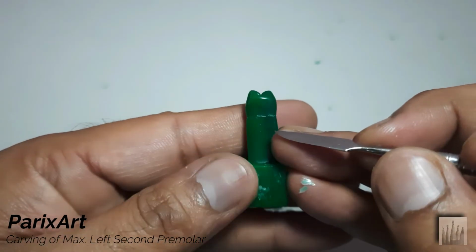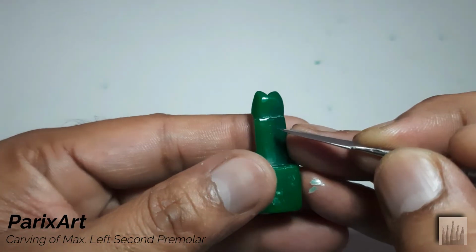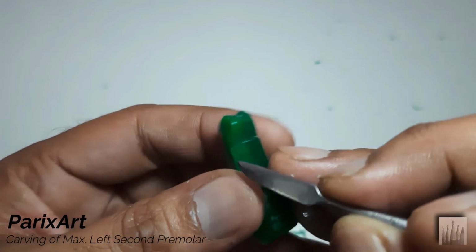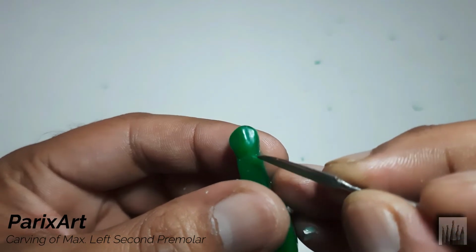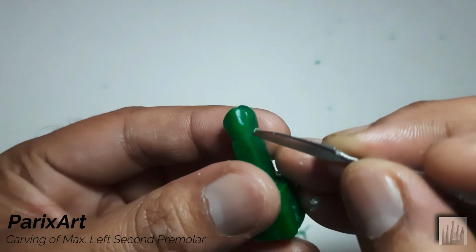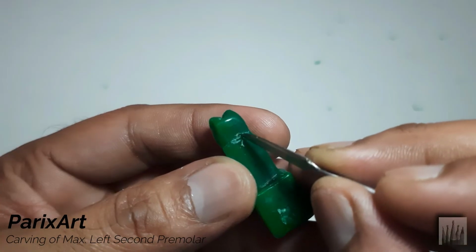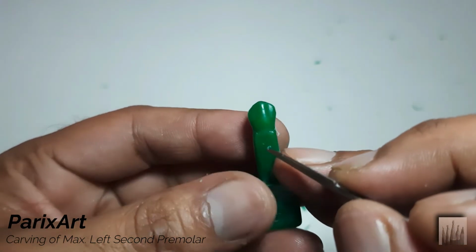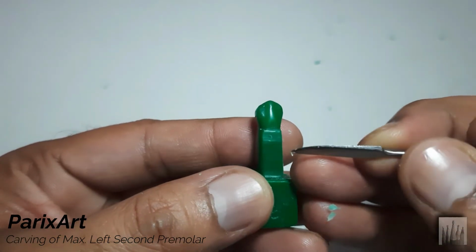Okay? First, we'll mark the 1 mm mark on the mesial aspect. Like that. Now we'll draw the cervical line very lightly, starting with the buccal side with very slight curvature. On mesial, crest of curvature at 1 mm marking. The slight curvature at the distobuccal, keeping flat cervical line at the distal.